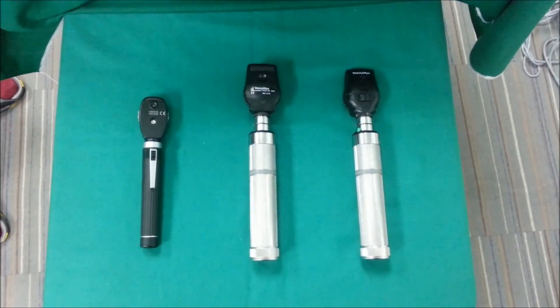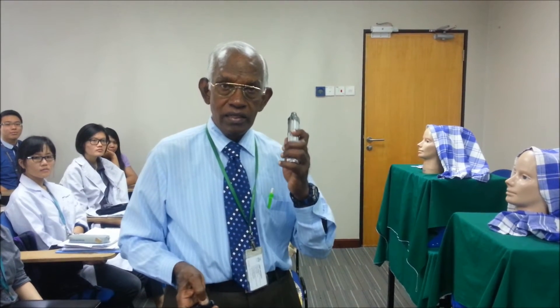These are the different models of direct ophthalmoscopes available and all of them have the same features. The direct ophthalmoscope consists of the head and the handle. The head consists of a lens wheel which can be rotated and it contains lenses which are plus and minus. The plus lenses are either green, yellow or black, whereas the minus lenses are always red.